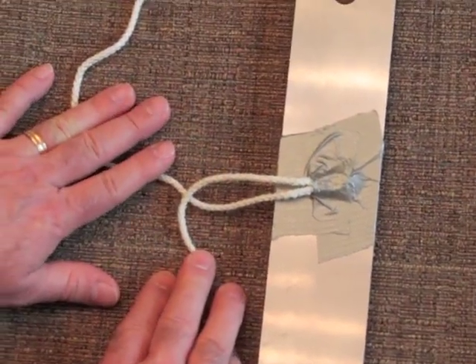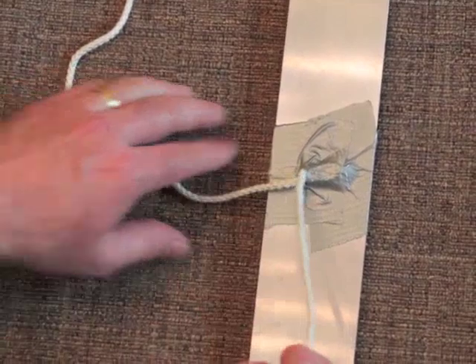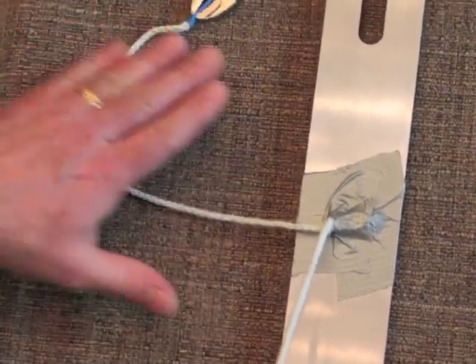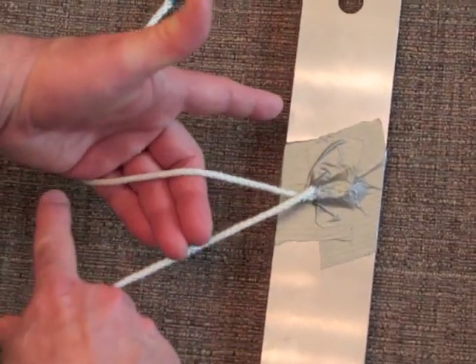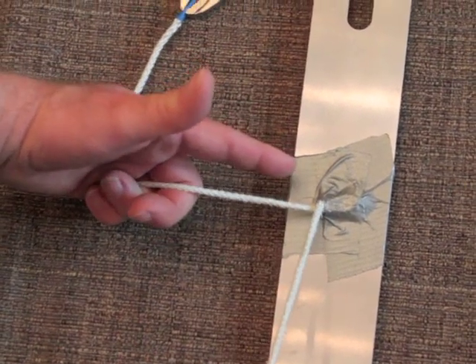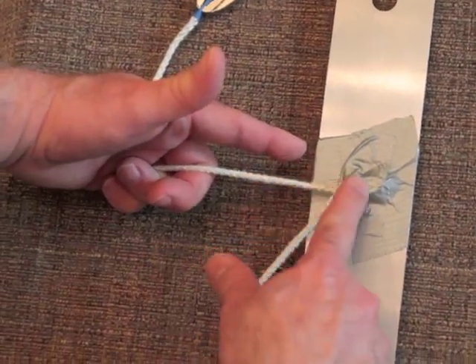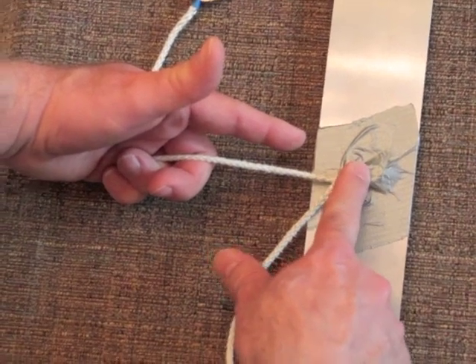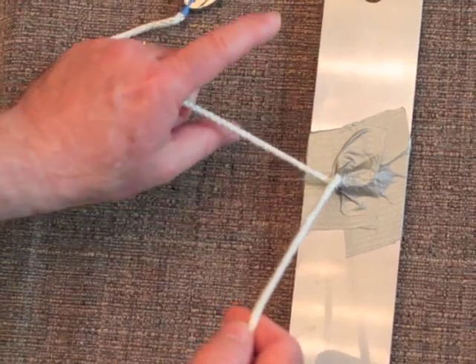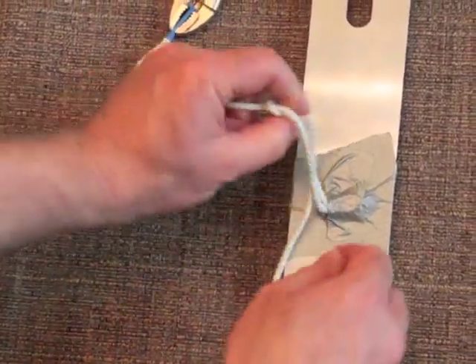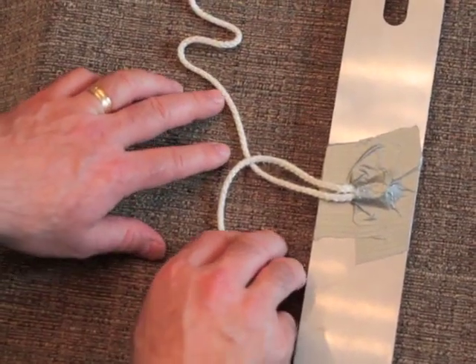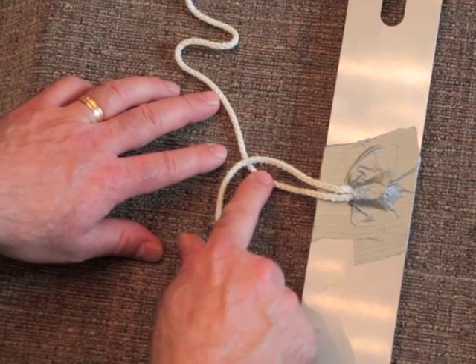The next tip I'd like to review with you is the importance of setting your hands up at the right distance. In addition to the gun hand allowing you good control of the suture coming up from the driver into your fingers, it also allows you to be at about an inch from your knot as you set up. This will help you have the right amount of suture in your hand to be able to tie comfortably.